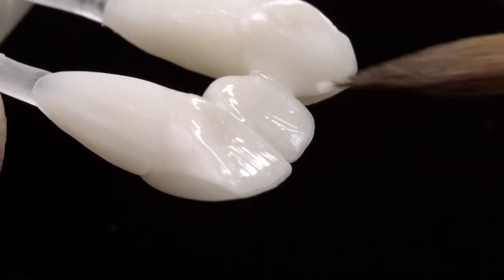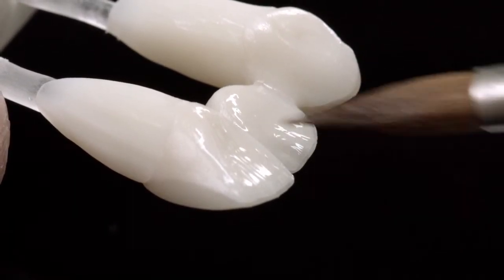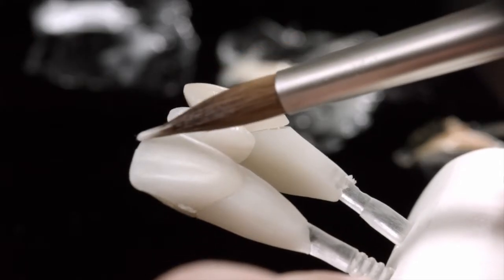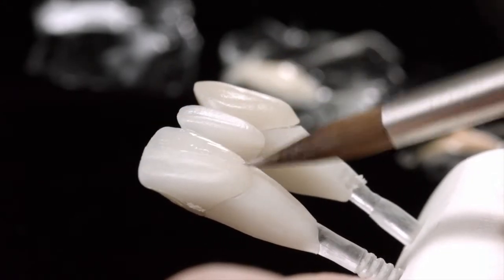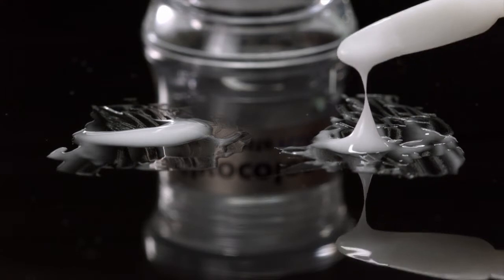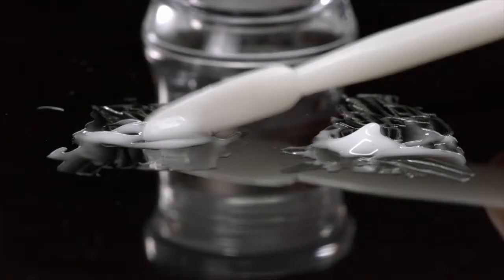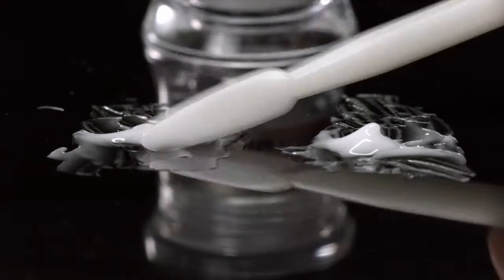The glaze paste gives partially veneered restorations, or those fabricated using the cutback technique, an evenly distributed, high-gloss finish. Apply the glaze evenly onto the monolithic and veneered areas. If you require less shine, dilute the glaze paste or use IPS Ivocolor Glaze Powder instead of the glaze paste. It is even possible to use a combination of glaze powder and glaze paste.